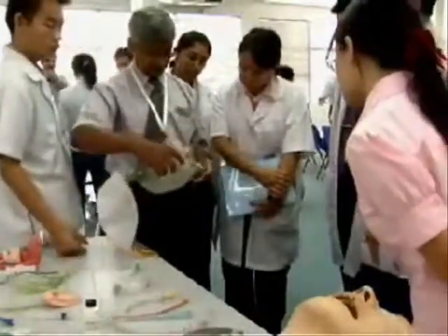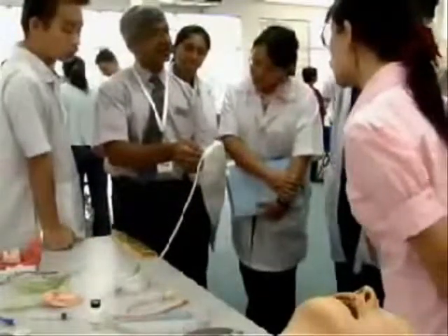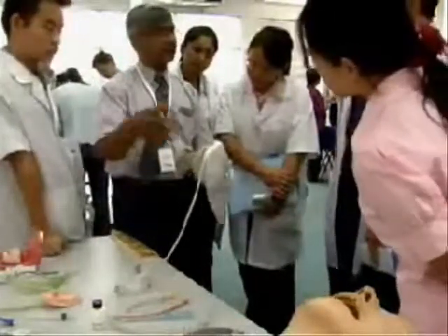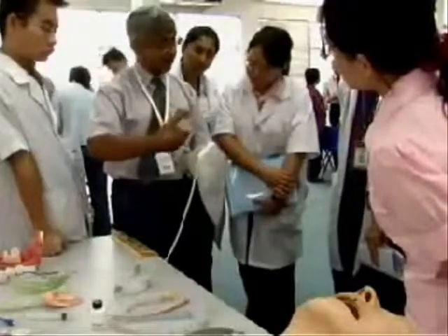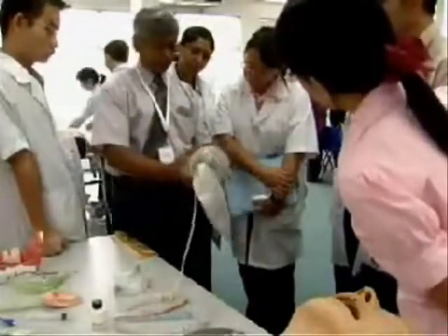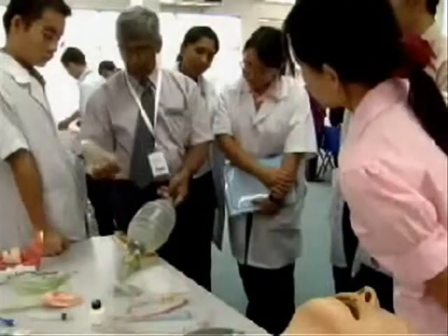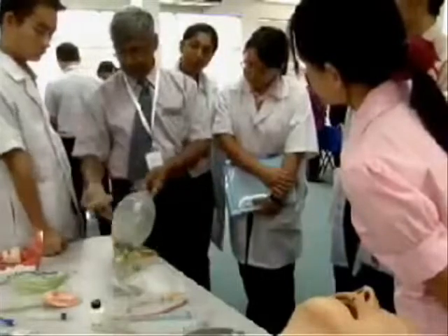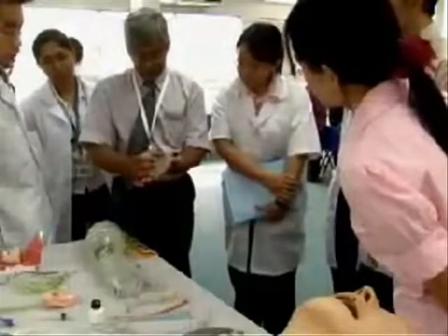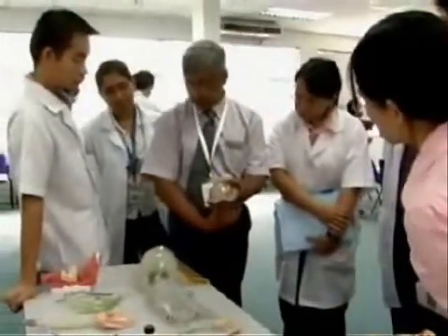Usually there is an additional port where you can attach some oxygen, if it is available. If it is not there, don't worry about that. Without supplemental oxygen you are delivering 21% oxygen. This is the mask — the way of getting a good fit down to the face so that when you squeeze, all the gases go into the patient.